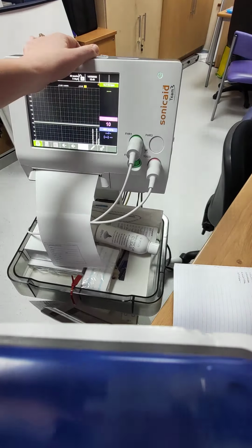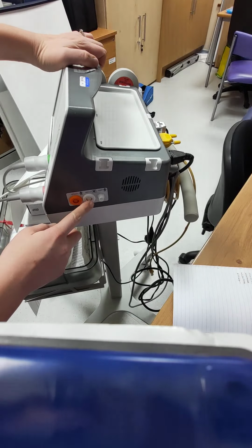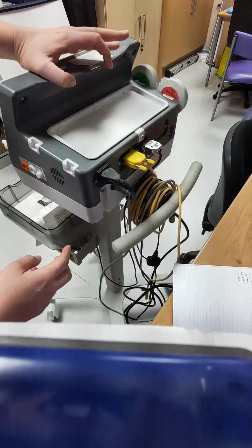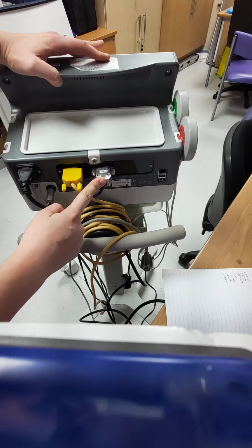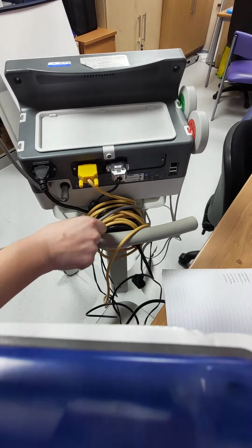And then just around the side, you've got your SATS probe and blood pressure cuff probes that will hold that. Turning around to the back, you've obviously got your power lead, this one for the central monitoring, and then this one has got the telemetry attached to it as well. And we also have your fetal event marker.